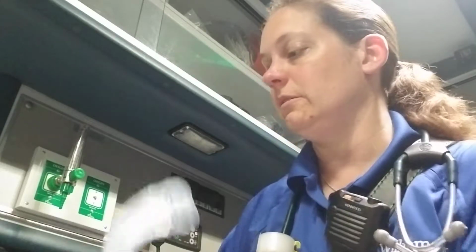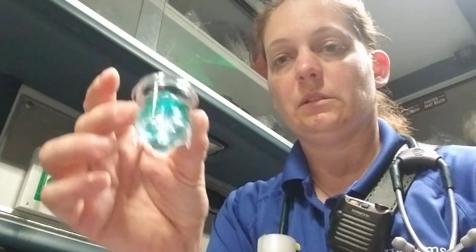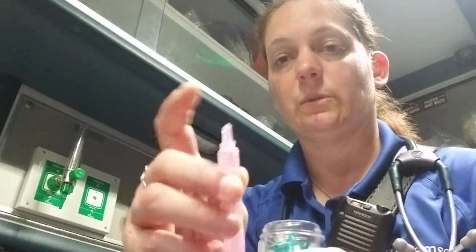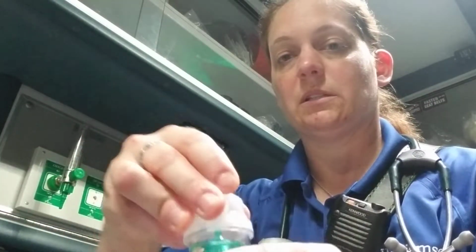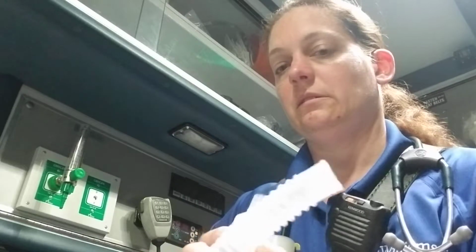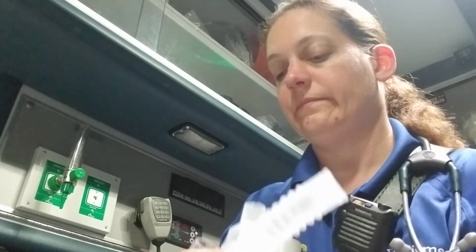And then I would go over how to assemble the equipment for him. So this is the bottom cup, which I've already dumped my medicine in, so I'd show him how to twist off the top and then just squeeze it in there, and then this goes on the top, and he's got his little T-piece here.